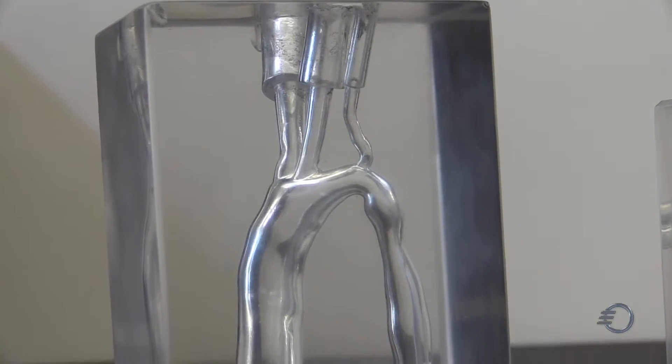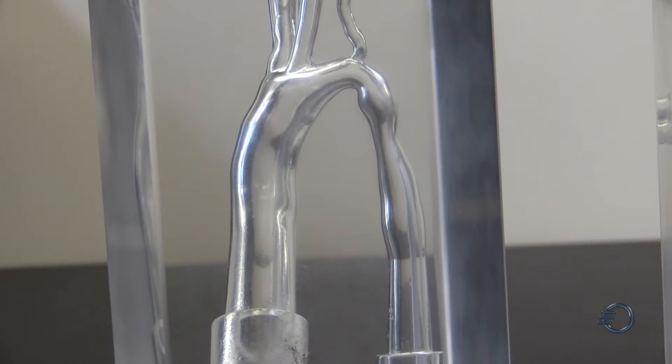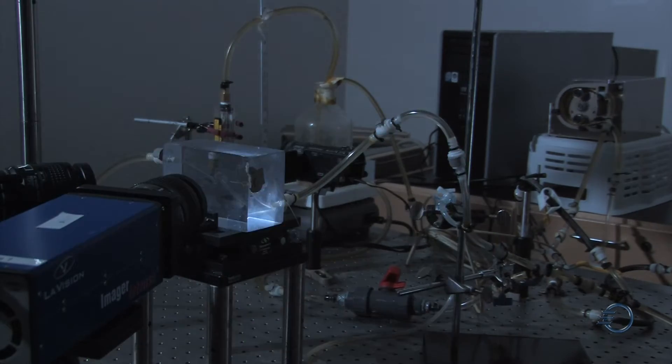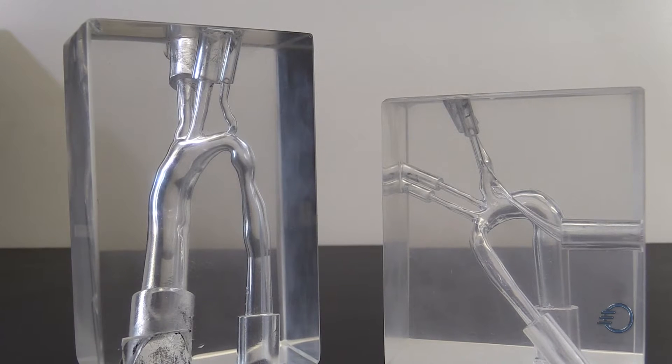We take patient data, 3D print it with SolidScape product, and then we are able to do experimentation to allow us to better understand how our anatomical systems actually change the flow patterns and more so how we can best treat patients with the same type of anatomy.